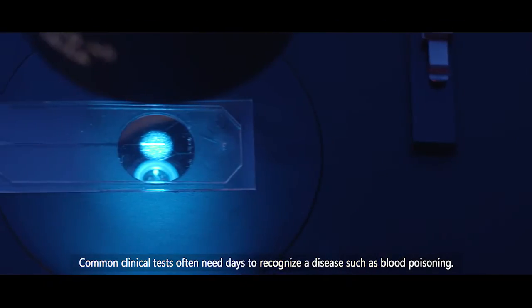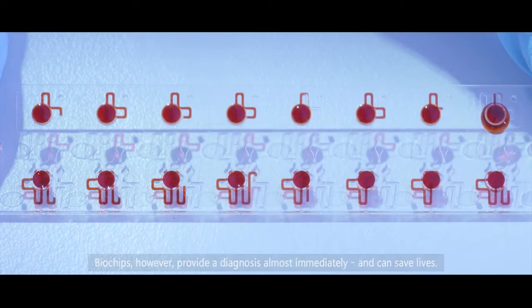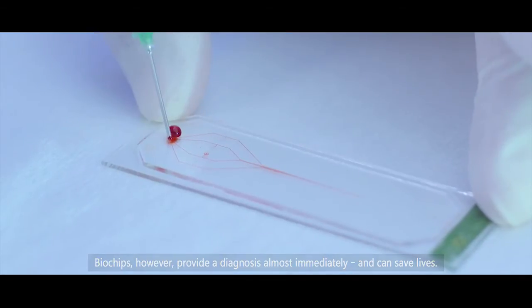Common clinical tests often need days to recognize a disease such as blood poisoning. Biochips, however, provide a diagnosis almost immediately and can save lives.